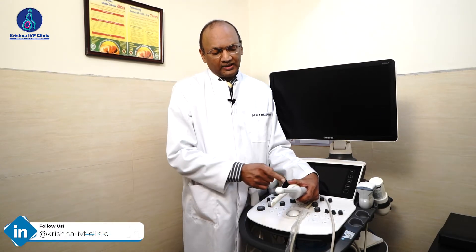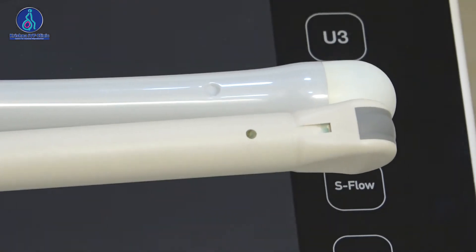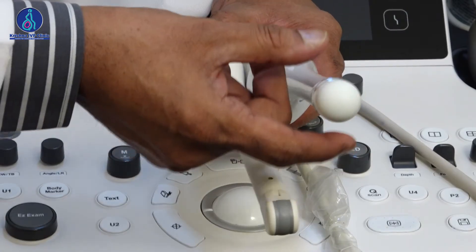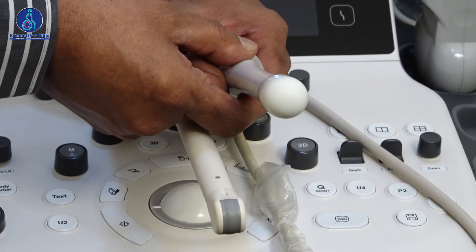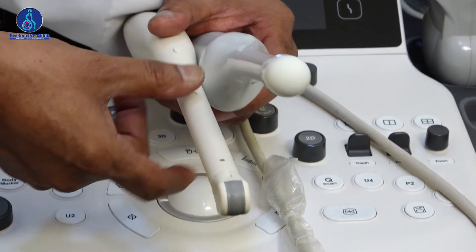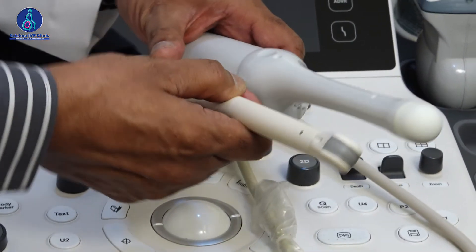This is a more advanced probe, but the diameter of this probe is larger because it has many fibers and cables to accommodate, so that it accumulates a large volume of data.